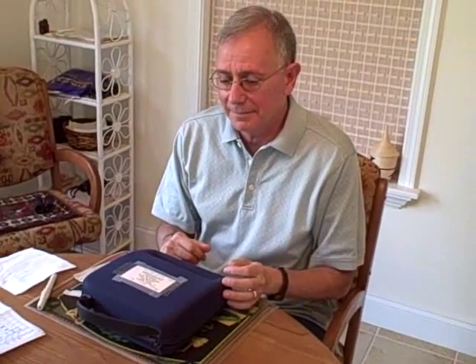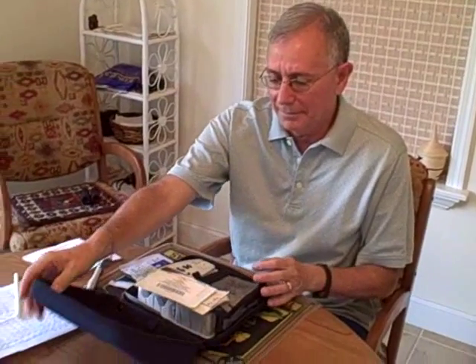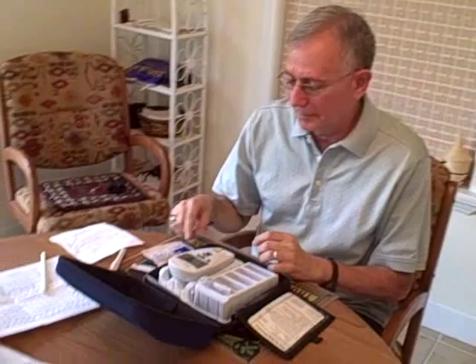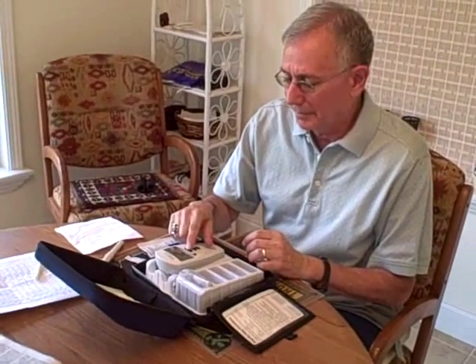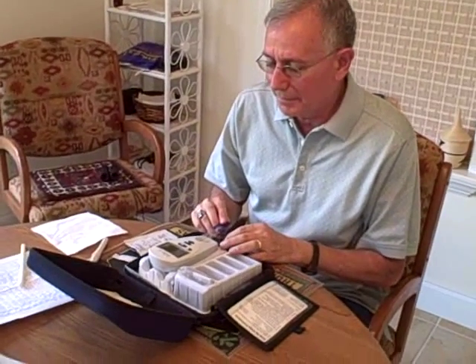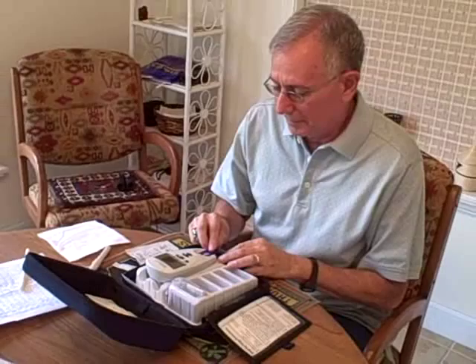This is a video that we're making in real time to show people who are on Coumadin, a blood thinner, the simplicity of using a self-testing monitor. My husband is going to do the test.